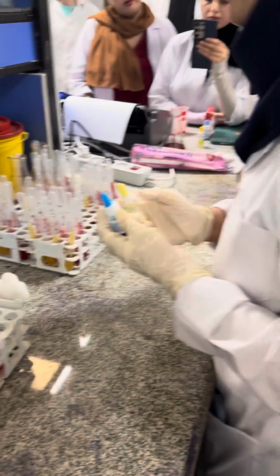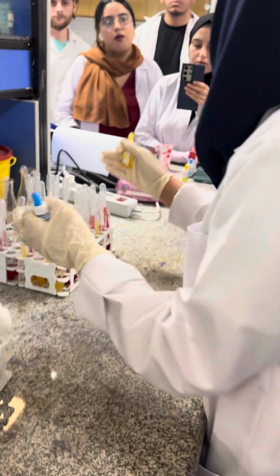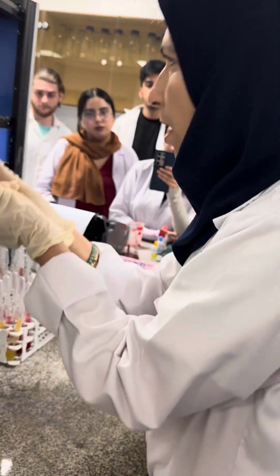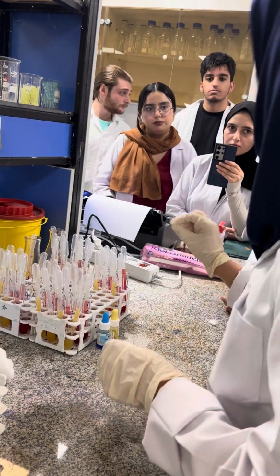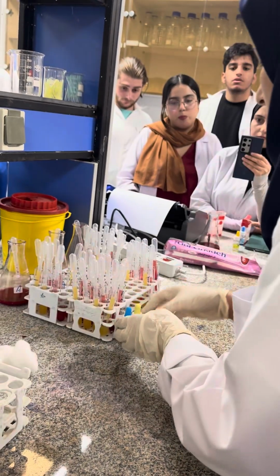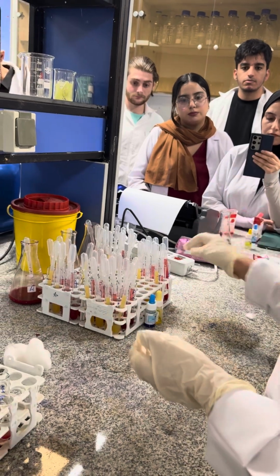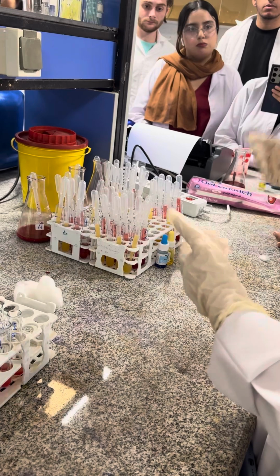Based on all of the materials that you have on your bench, at the beginning you must guess which method you must do, for example, direct or indirect. If you have anti-A and anti-B on your bench, it is direct. If you don't have, it is indirect. You must mention it, and after that, start your work, and after that, you must write the type of the ABO blood group and write why. For example, you write for me the ABO blood group is A. You must explain completely why A.